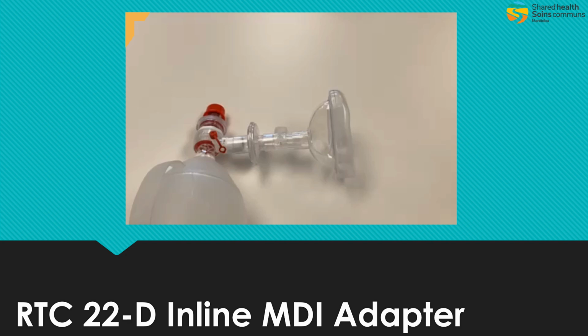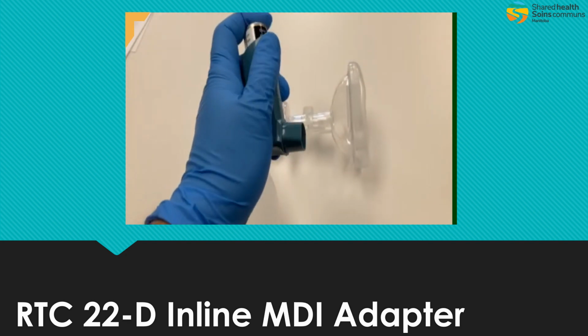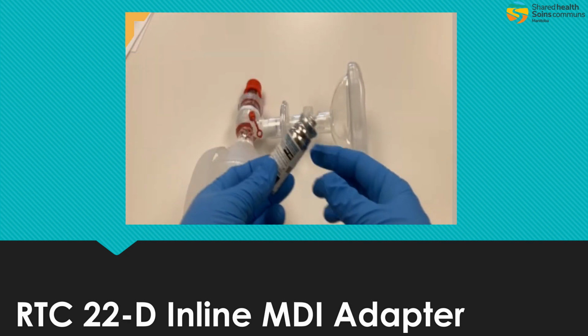The first step: you can see here we've got our adapters on. We have our MDI adapter in between our filter and our mask on our BVM. To use this device, we're going to take our salbutamol and prime it. Then we are going to remove the canister from the MDI base.